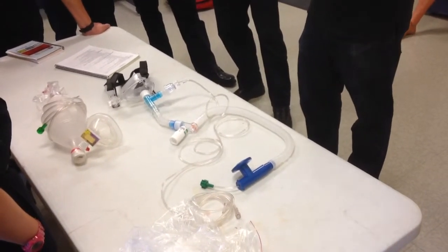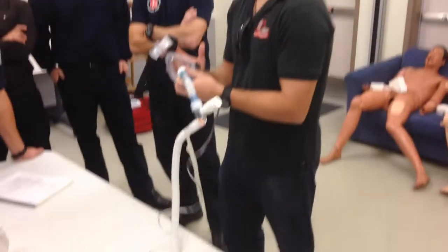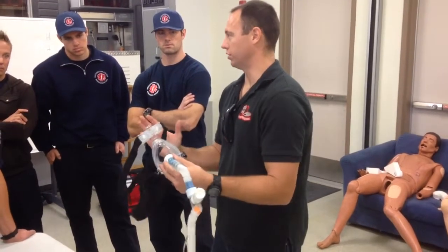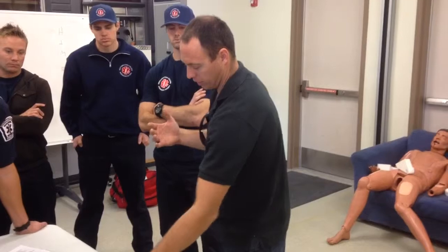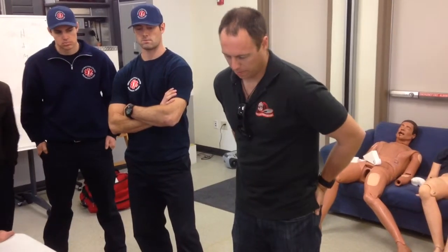See if you can find that mix, and you can put your hand over this to simulate your back pressure. You can do a respiratory rate: take a breath, back pressure, take a breath, and see how much mist you're getting. Does that make sense? That's my recommendation: figure out what works, go through it.